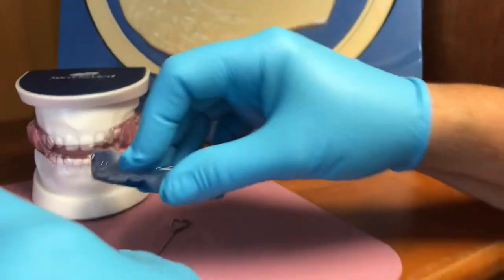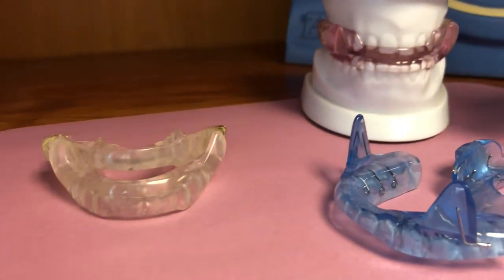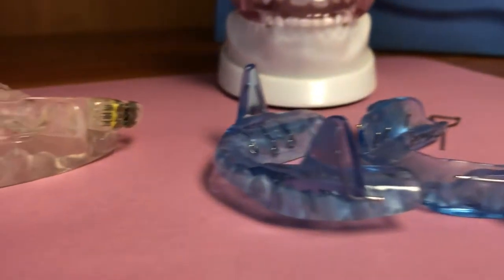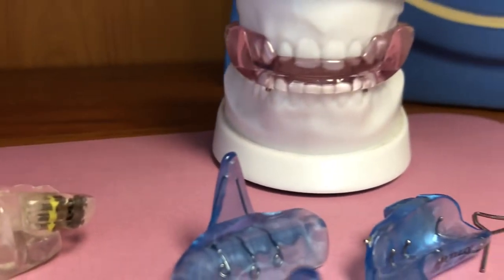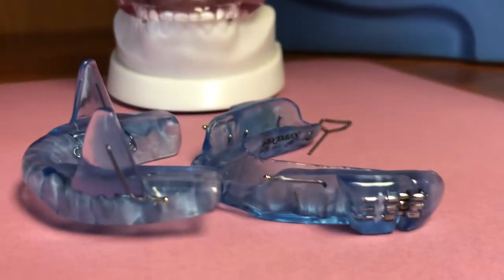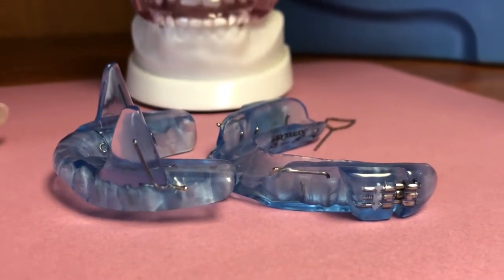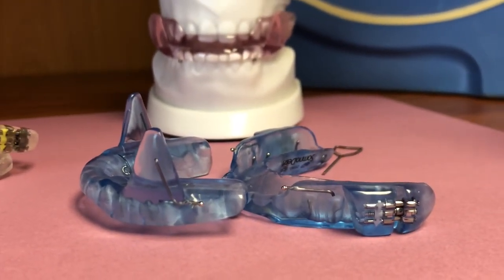So, again, this is the instructions for a variety of dorsal-type devices, including the Somnodent line and other laboratories that have similar devices. But always ask your primary dentist for further instructions. Some patients never have to advance their device. If the symptoms are controlled, do not advance it unless your dentist has also mentioned for you to go further based on results.